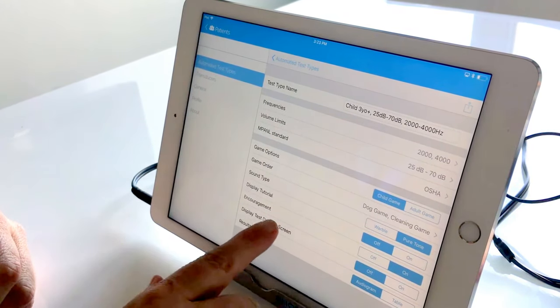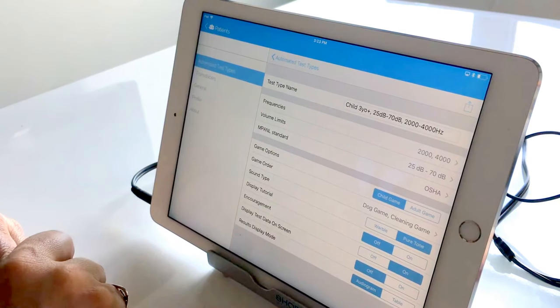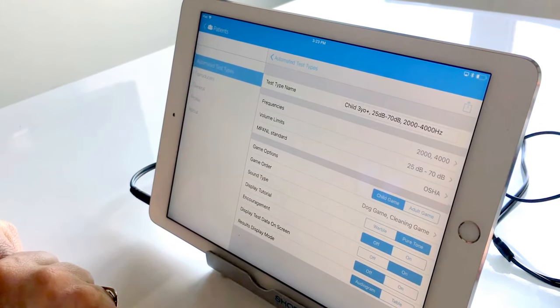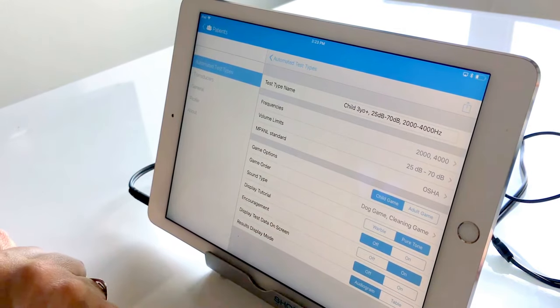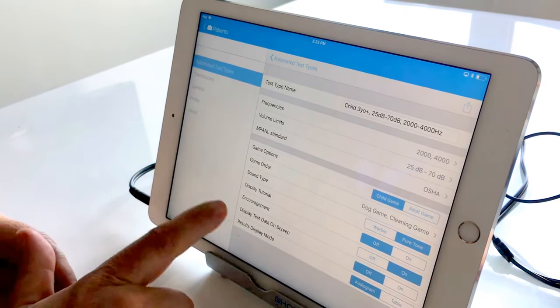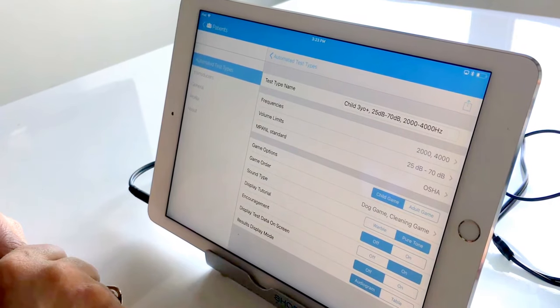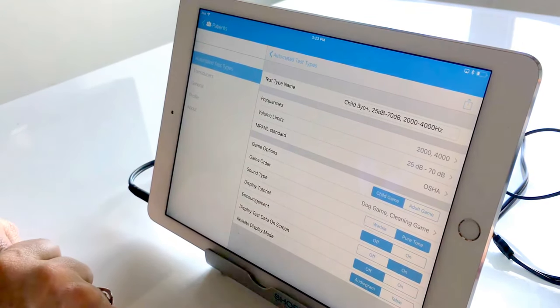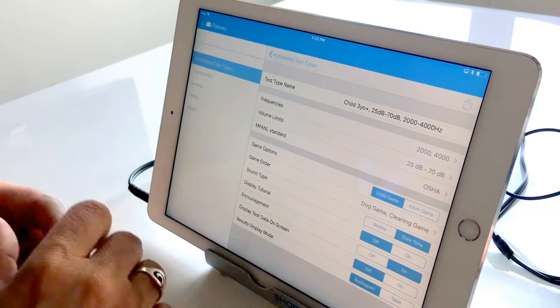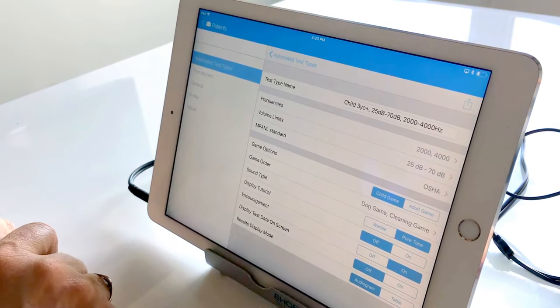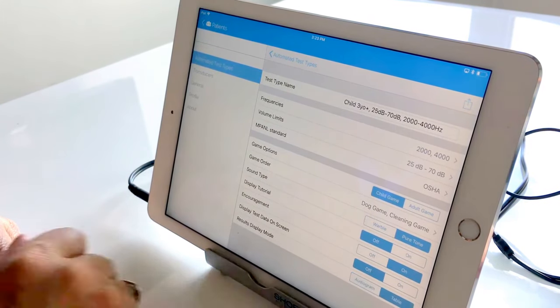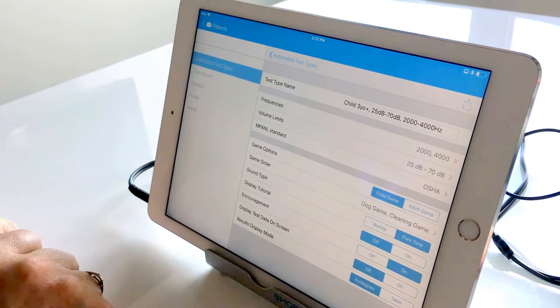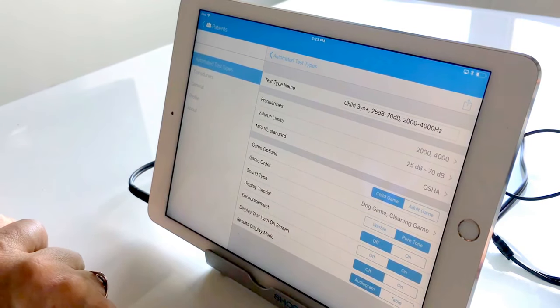In terms of display test data on screen that is more of a teaching tool for training. So if you're doing clinical testing you will want that to be selected as off. And then the results display mode again personal preference most of the time it's set to audiogram. If for some reason whoever is reviewing the results is more used to a tabular representation then they can go ahead and select table. But for the most part audiogram is what you would be selecting.